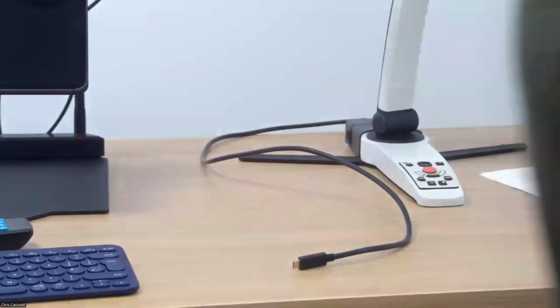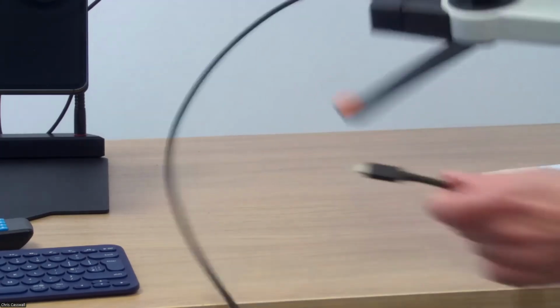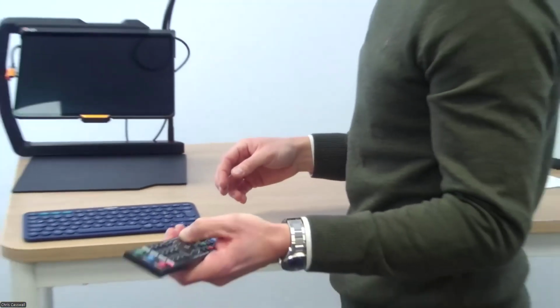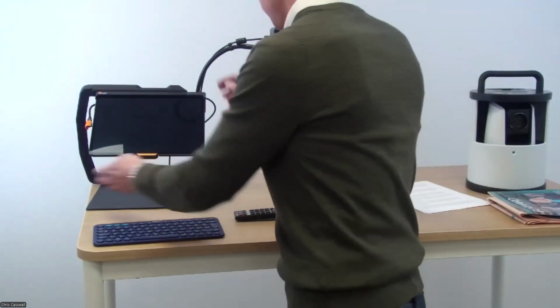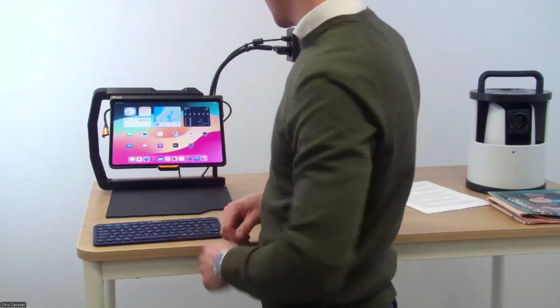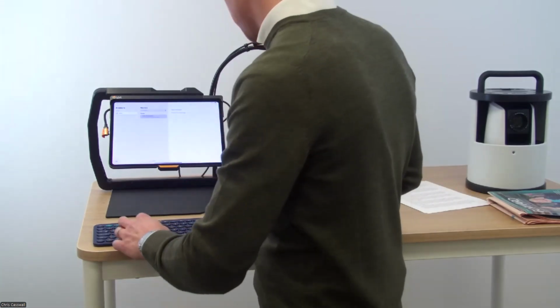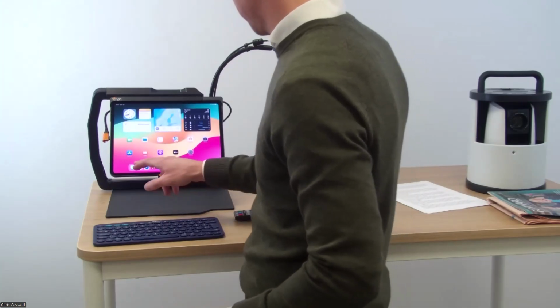So since we have a lot to cover, I will put that camera away for now. And then I will come back here. And now we will take a little deeper dive into the software and AI. Before we do so, I'm just going to make sure that my Bluetooth keyboard is connected. Yes, that works. Very good.